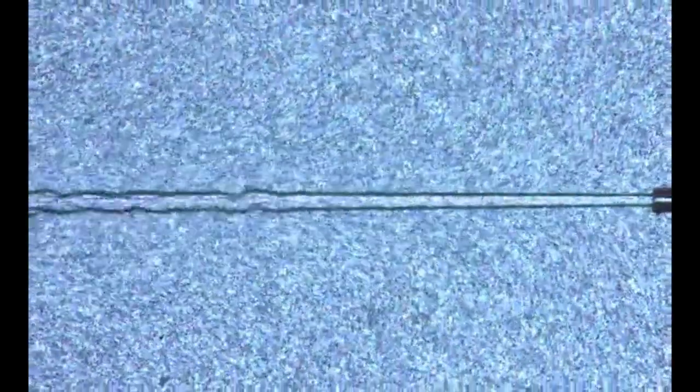What you're watching is a simulation of drug delivery into the skin, in this case of a particulate, but not using a needle. We're developing a system that eliminates the use of needles and instead delivers drugs into tissue using a high-pressure stream right into the skin.